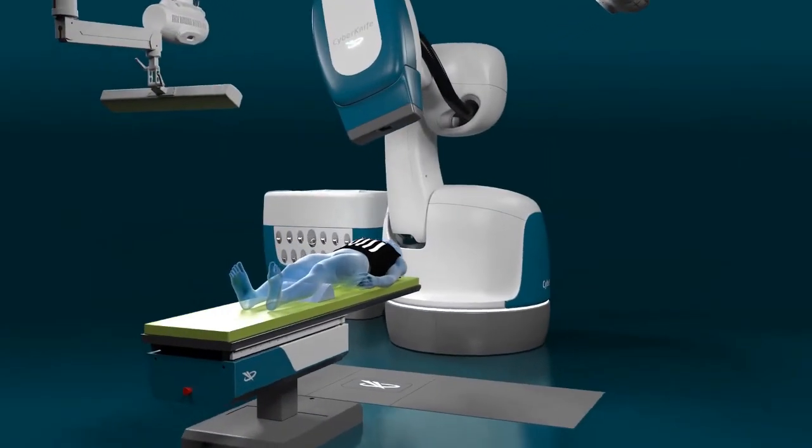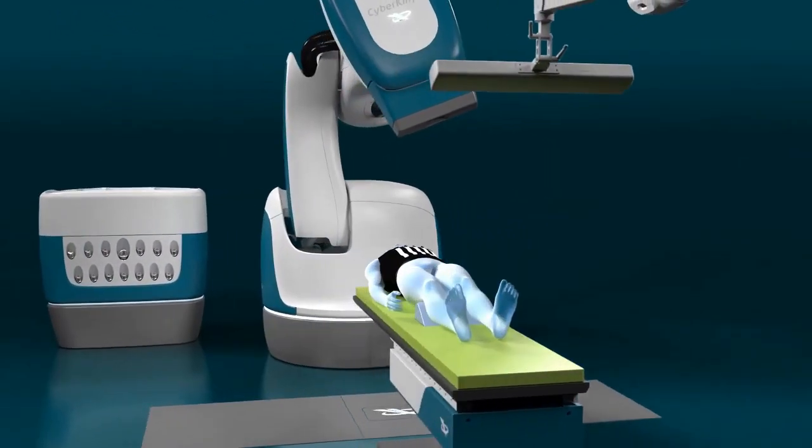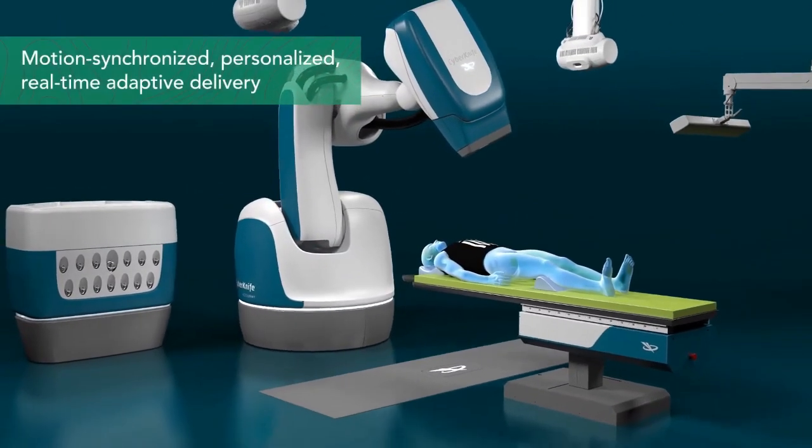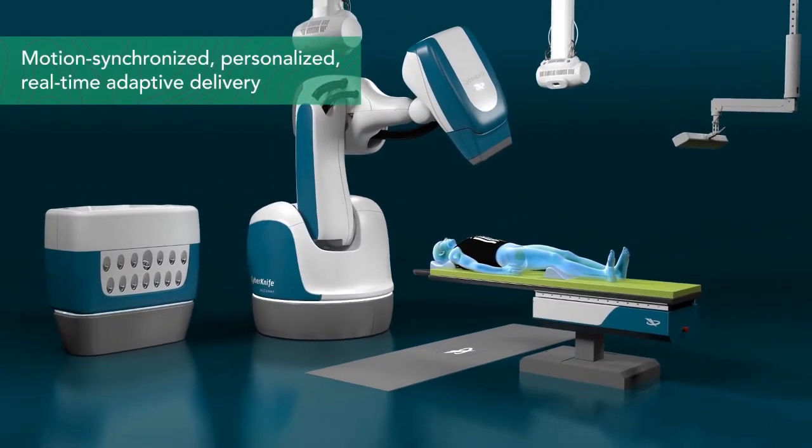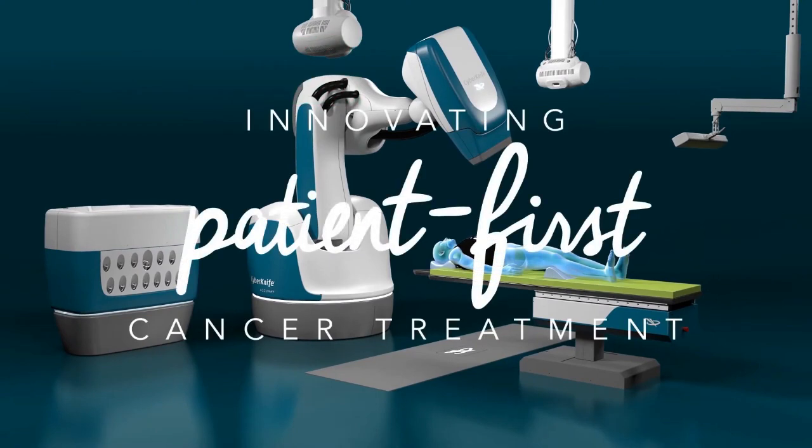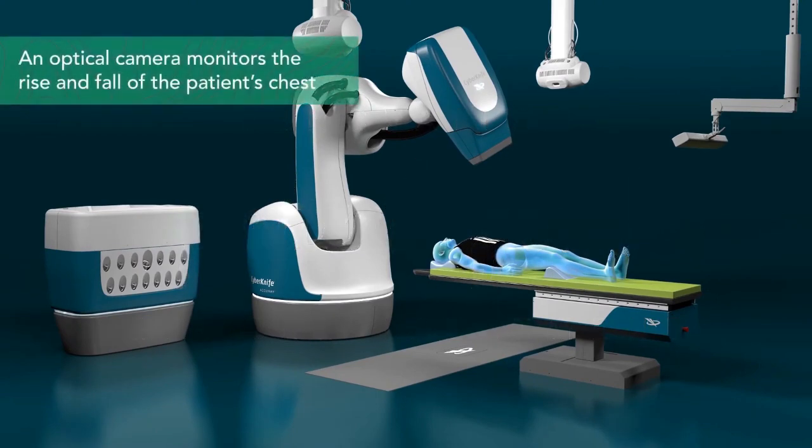Hello, welcome to Biomedical Engineers TV. In today's video, we delve deep into the world of precision radiation therapy with the CyberKnife system. This groundbreaking technology is changing the landscape of cancer treatment as we know it.